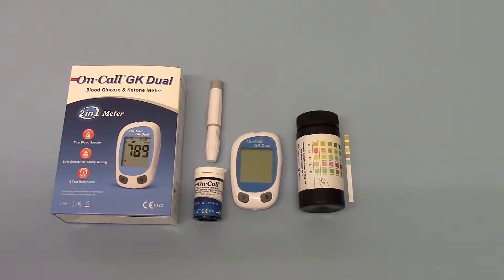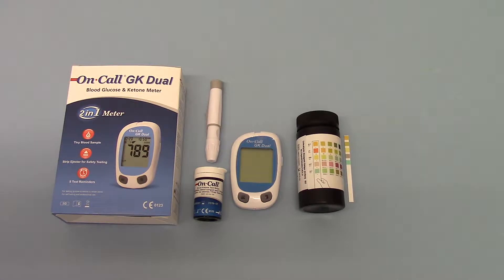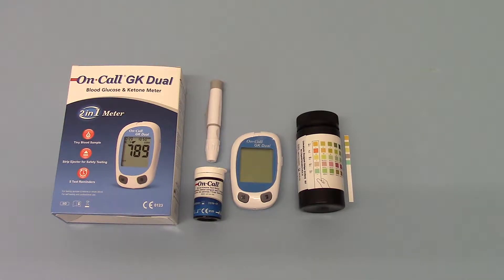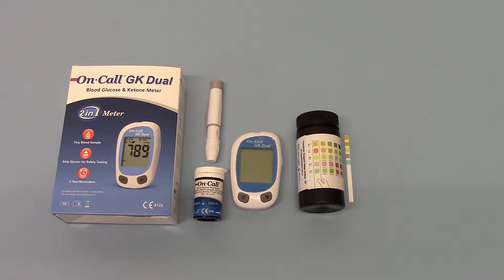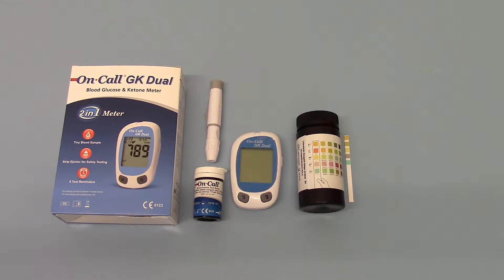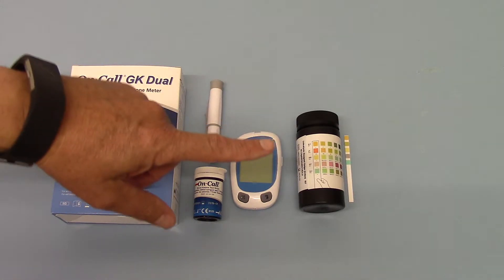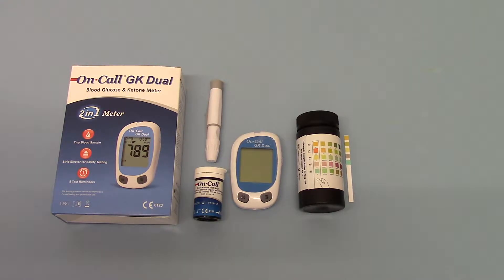Of course, the indicator for ketones being present is quite delayed because you're looking at a concentrated or diluted response in the urine, which doesn't give you a direct indicator of what's going on in the blood at that current time. But for dietary testing, where you're just looking to see if you have restricted your carbohydrates to a degree where you're burning body fat and producing ketones, which then leach out into the urine — for Atkins diet and dietary restrictions where you're trying to put yourself into acute ketosis — these are perfectly adequate and there is no real reason why you would want to know the exact level of ketones in your blood.